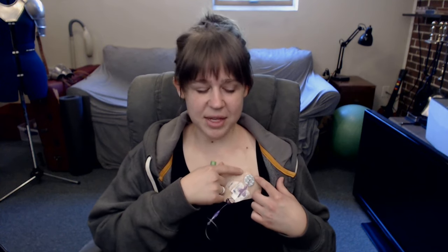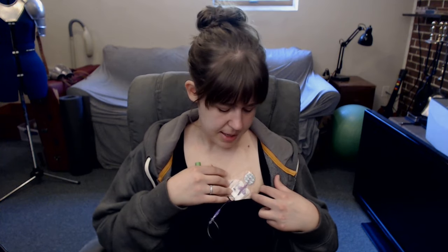The next part is — I don't think you can see it, but there's a clear plastic sticker called a Tegaderm that basically gets laid all the way across the whole thing, from right here to right there. It makes sure that everything stays in place and also keeps dirt and grime and that sort of thing out of the area and keeps it very clean.